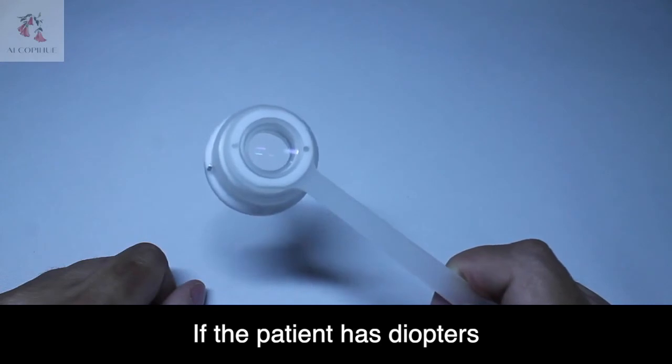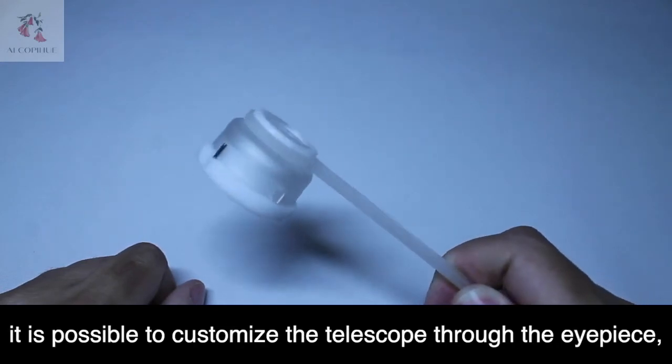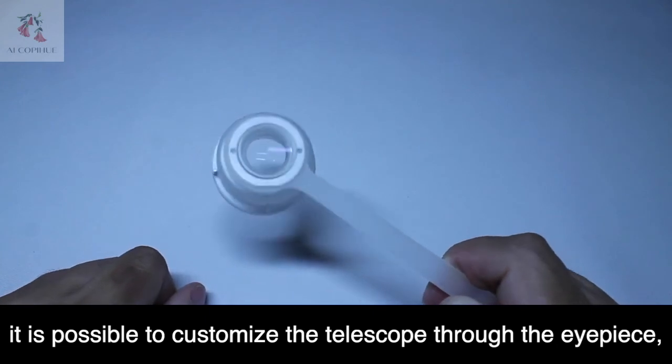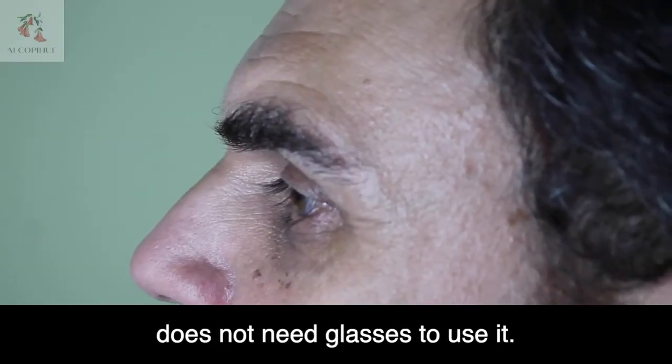If the patient has diopters and needs glasses to see far away, it is possible to customize the telescope through the eyepiece so that the patient with diopters does not need glasses to use it.